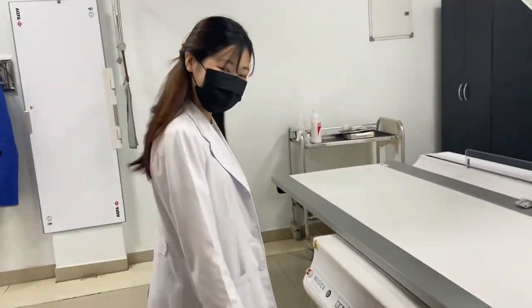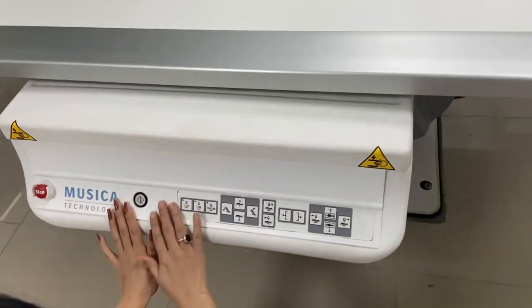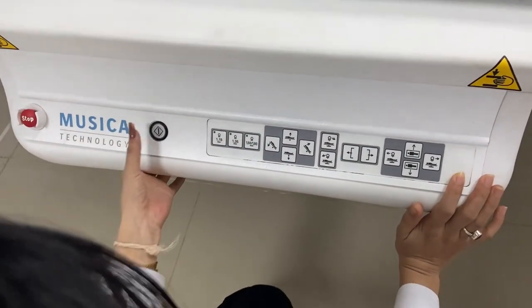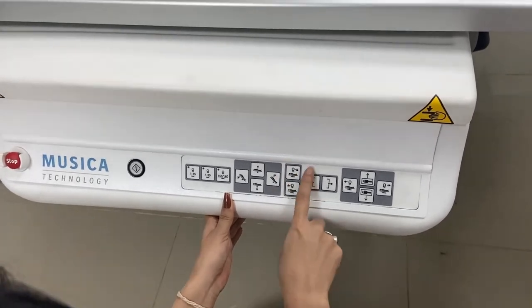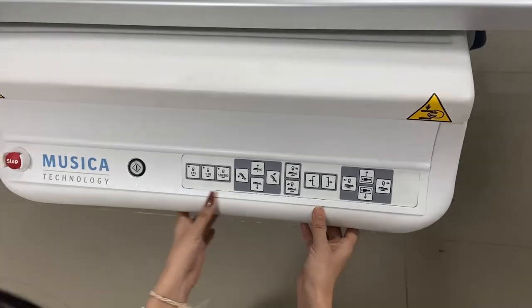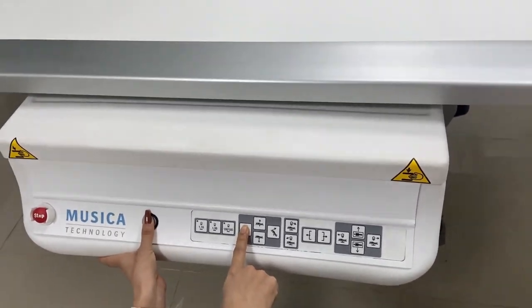After that I'm going to show you how they appear on the control panel. Stay tuned — I'm going to show you from this machine so you can see the control panel here too. Before this one is for the table part, this is for the collimator, and this is just the left hand side. This is for both, so you have to press it here.